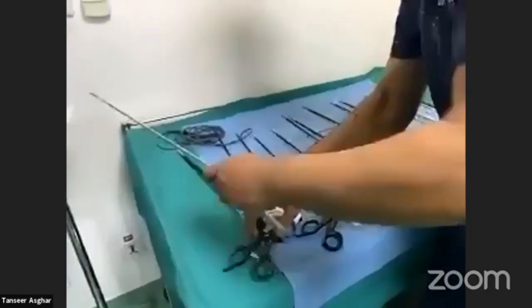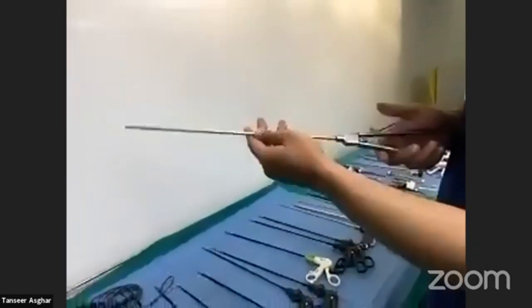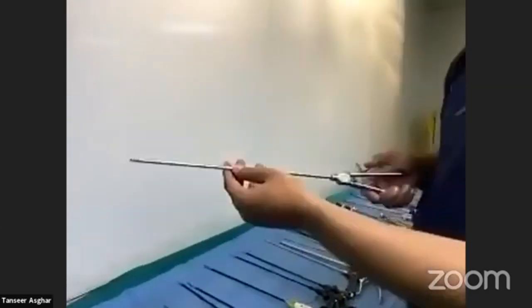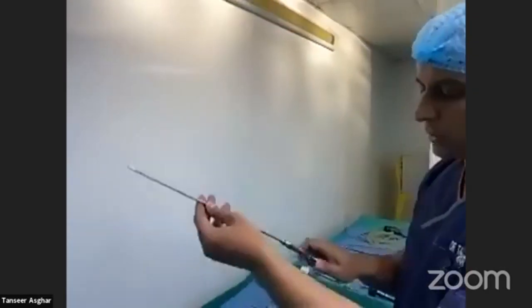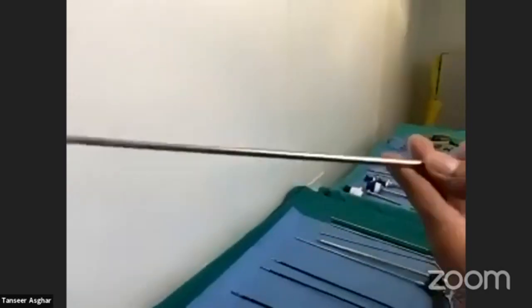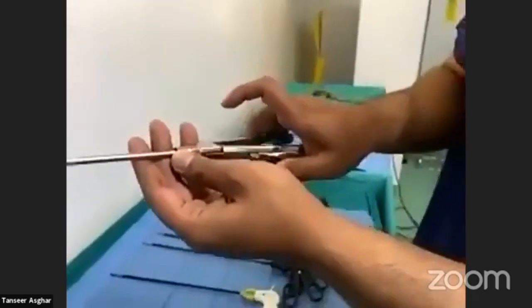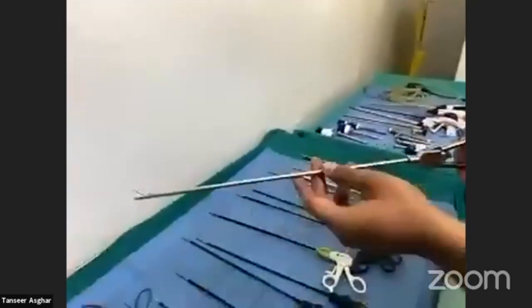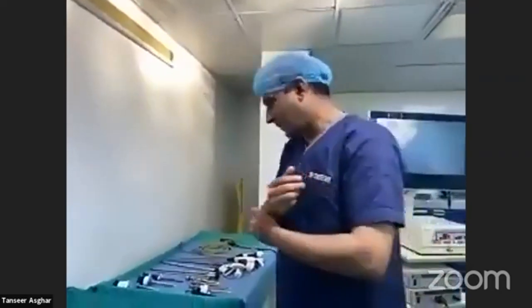This is another important instrument used mainly in advanced laparoscopy, where intracorporeal suturing and knotting are performed. This is an endo-needle holder. They are of different types. It has a shaft, a lock, and you unlock it by pressing. You mount a needle over it and start suturing. Some companies make autocorrect-type needle holders where you just hold the needle and it auto-corrects to a straight line.